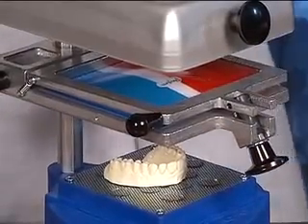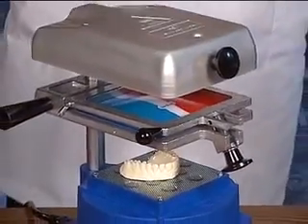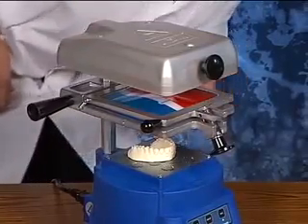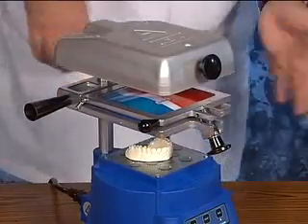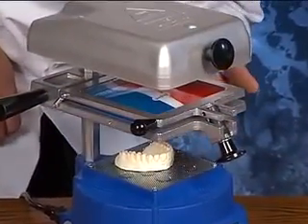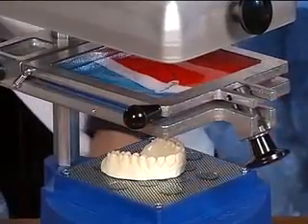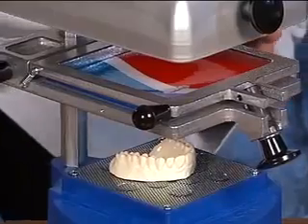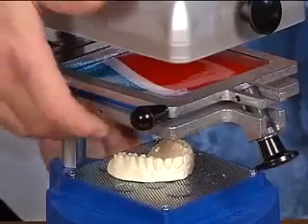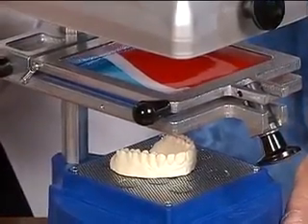You'll also notice when you first turn the unit on, you'll get a smell of oil — that's a manufacturing smell, not to be concerned about. A little smoke often occurs from putting the unit together, and after a couple of usages that won't occur. The material itself will tend to bow up at first and then lower down. I've just touched it outside to check — feeling around the periphery now, it's very pliable around the edges of the frame. At this point we turn the handle to loosen it and create the vacuum.